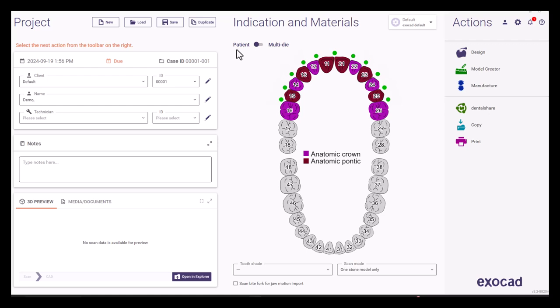Hello and welcome to another MicronMapper team video. Today I will show you how to properly process MicronMapper data in ExoCAD.